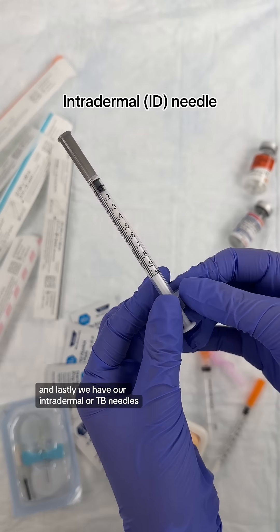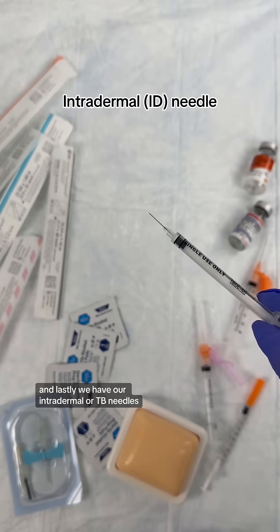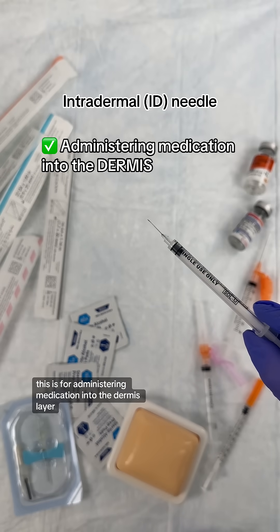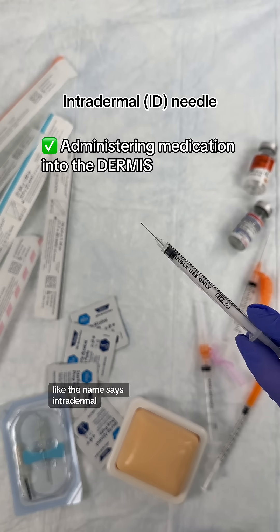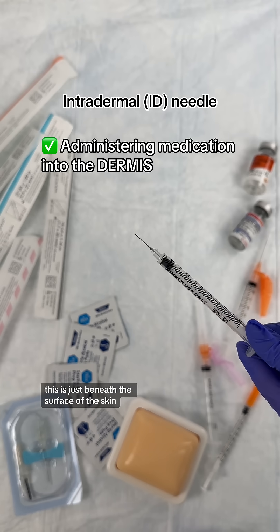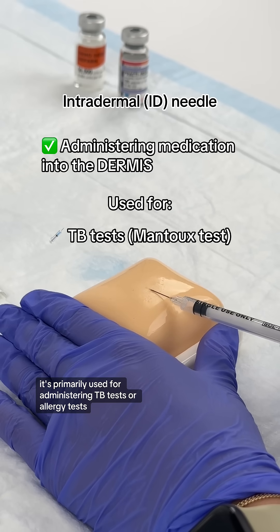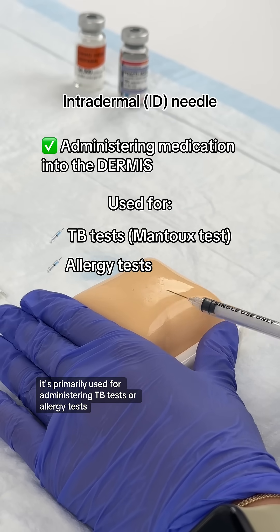And lastly, we have our intradermal or TB needles. This is for administering medication into the dermis layer — intradermal, just beneath the surface of the skin. It's primarily used for administering TB tests or allergy tests.